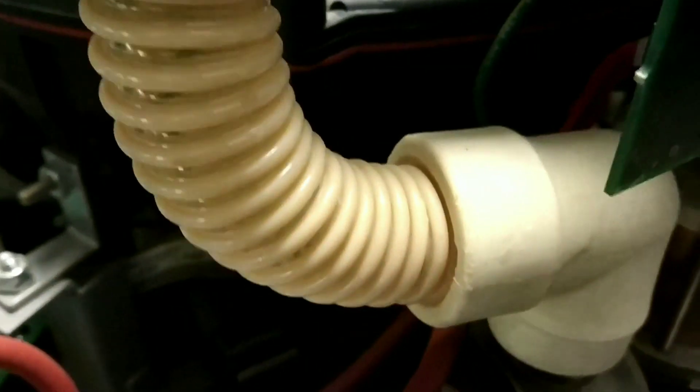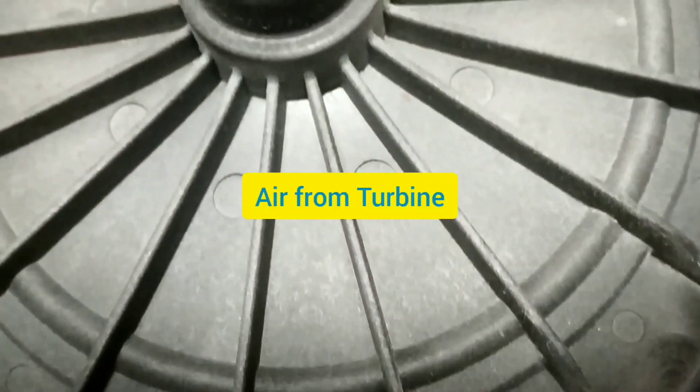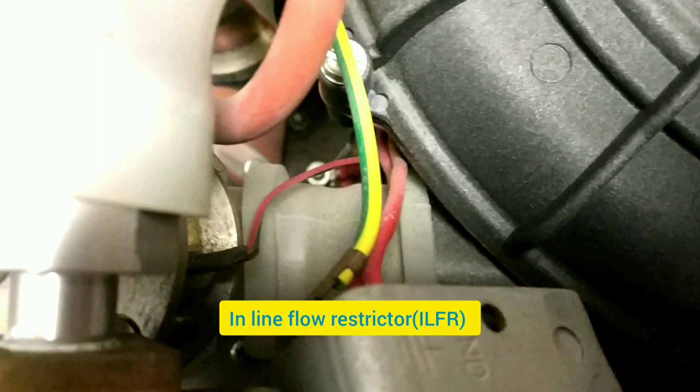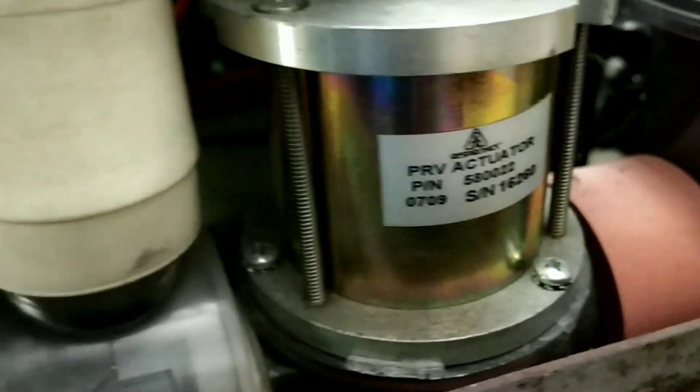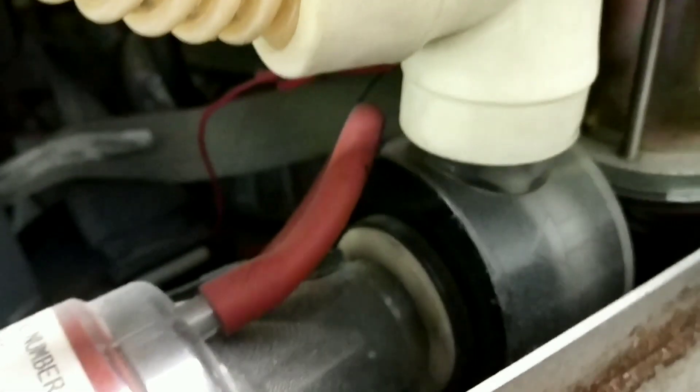I am showing different angles of the flow sensor, then it goes down to the oxygen baffle. Below is the oxygen baffle, and at this point air also reaches here from the turbine or blower when it is highly pressurized. It goes towards the inline flow restrictor — the ILFR — then to the PRV, the pressure regulation valve, then to the oxygen baffle where both oxygen and air get mixed. After that there is the airflow sensor, which also has a temperature sensor, and finally it goes to the patient.